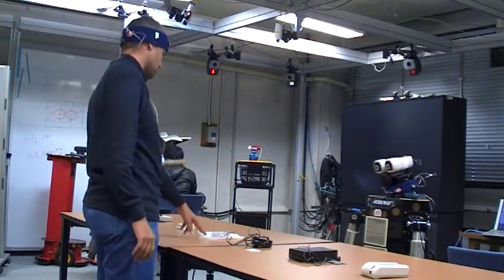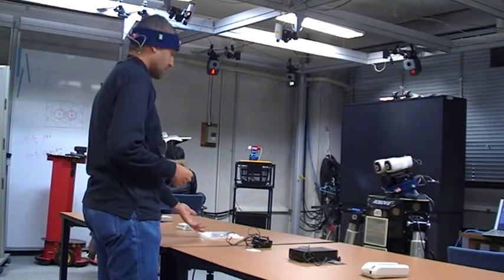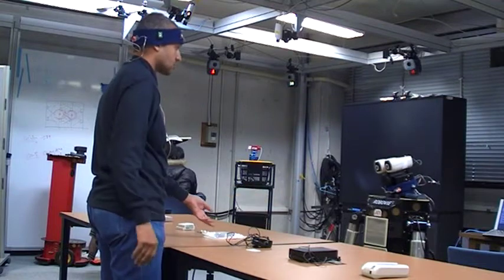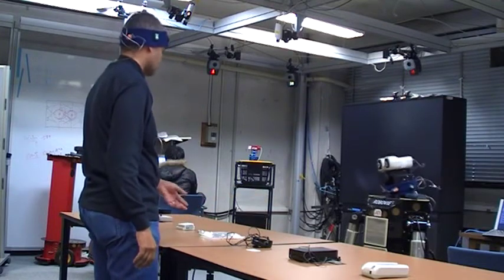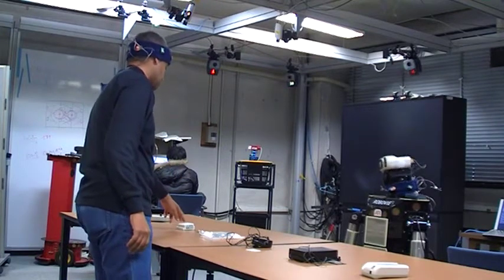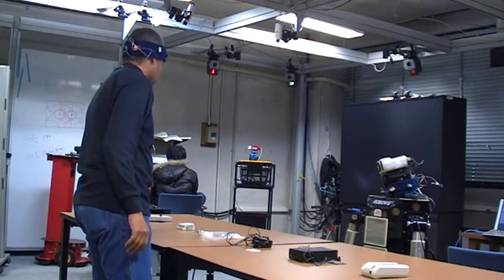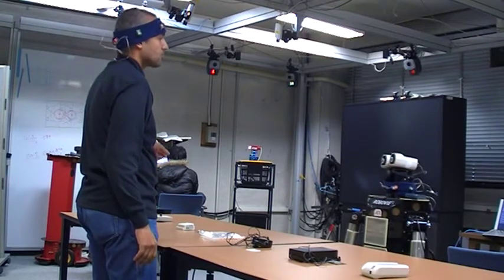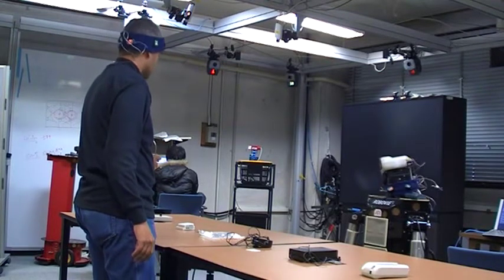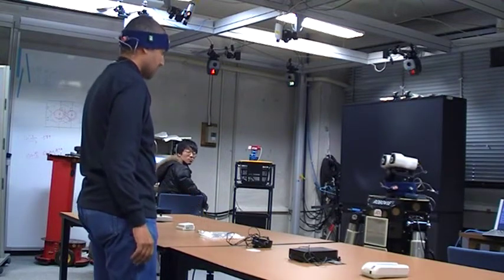Also, there are those cables. Those cables are connected to the body. Don't confuse them with the power supply. Those cables are used, for example, with EEG, which can also be measured, or when you use skin conductors. In both cases, you can connect them through those cables to the main device.